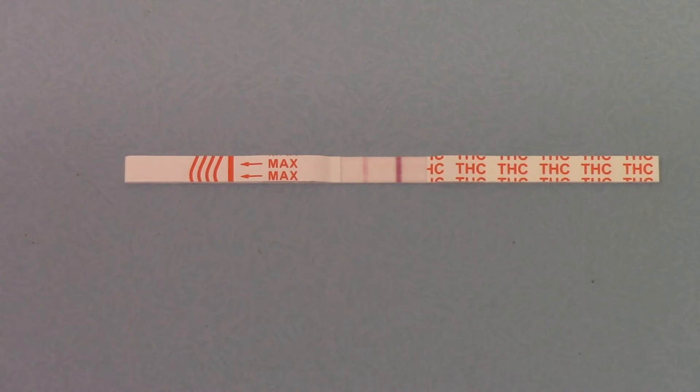The difference between a 25 nanogram screen and a 50 nanogram screen is that this one will detect cannabis for a slightly extended period of time after exposure. After the 50 nanogram level has been breached, our standard tests will give you a negative result, but there'll be a period where the concentration in urine is somewhere between 25 and 50 nanograms — and this membrane would still give you an indication that cannabis is being excreted. Once it drops below 25 nanograms, this test will then give a negative result.